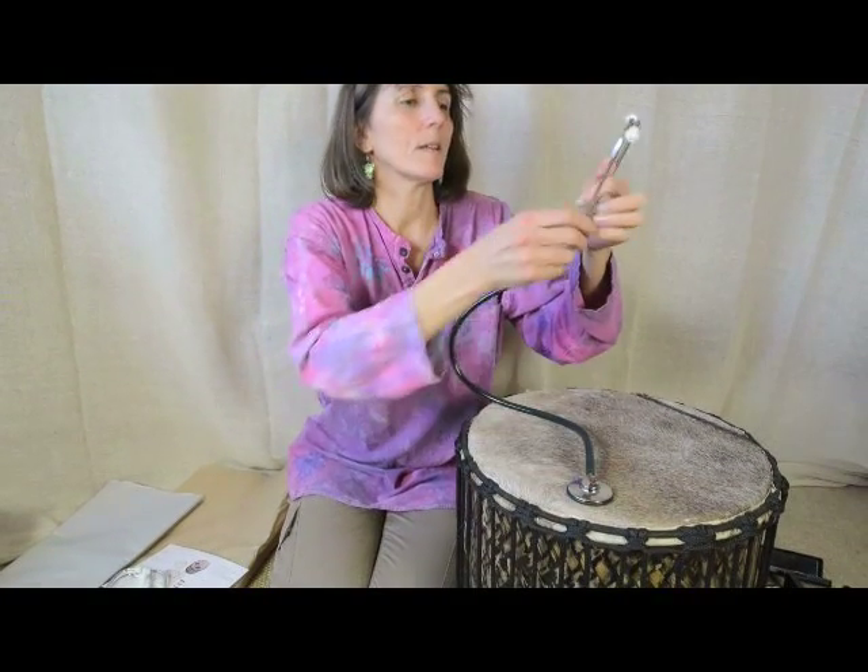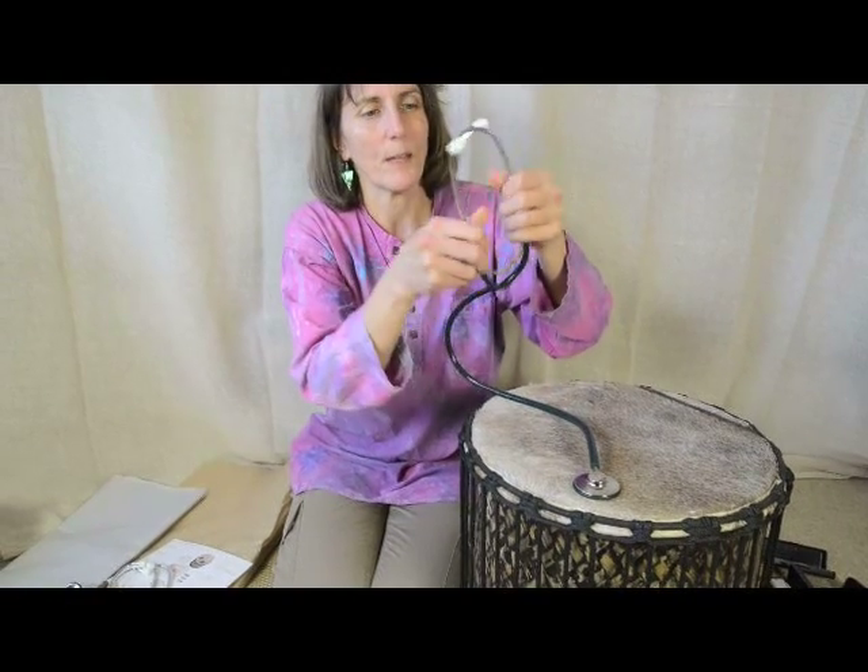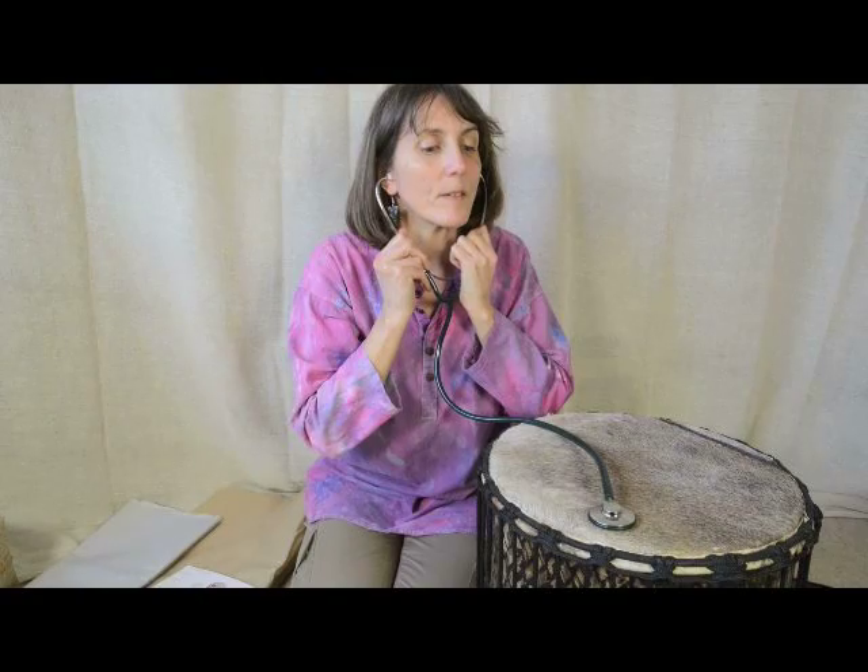The thing is, they're often quite tight when you first get them, so you can just do that with it until it fits whoever's ears you're going to put it on. I'm going to put it on my ears. With stethoscopes, it's not about going around being nurses and doctors with this — although you could if you wanted, I suppose — but it's about hearing, listening to things.